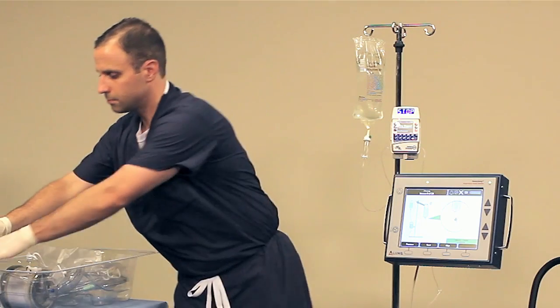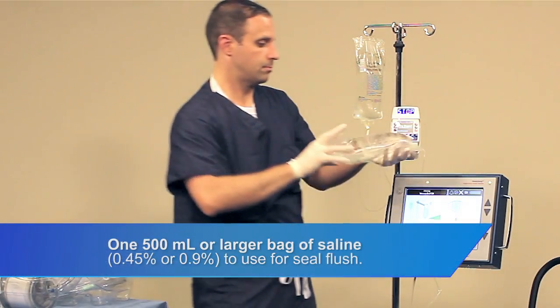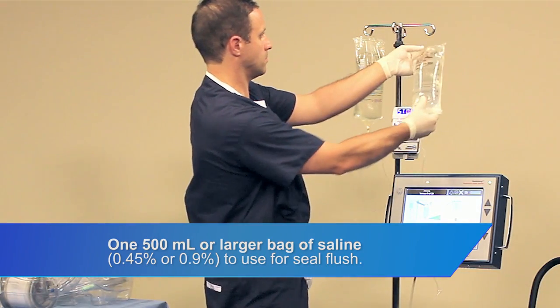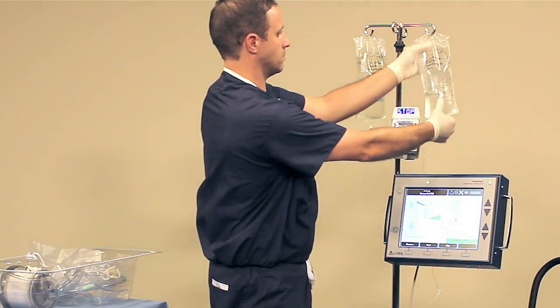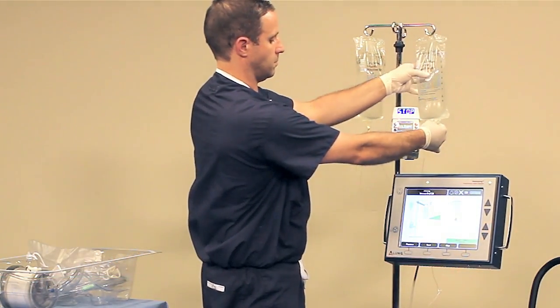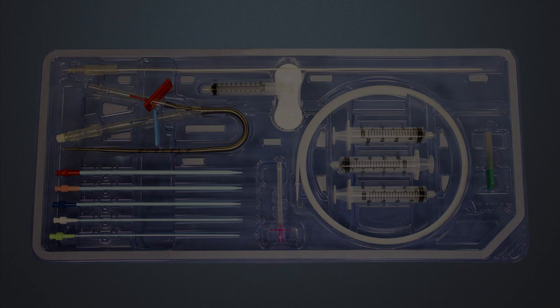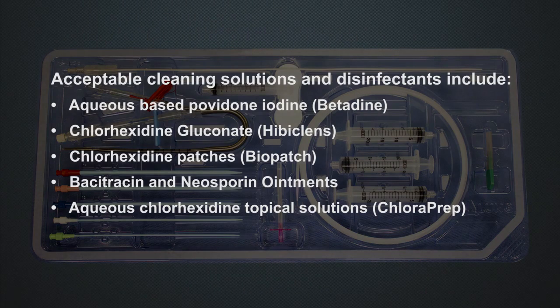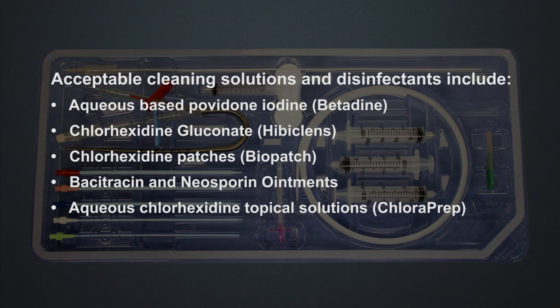It is also necessary to replenish the seal flush fluid using saline on a daily basis. Do this according to your institution's protocol. Catheter maintenance and insertion site care is also recommended per your institution's protocol.